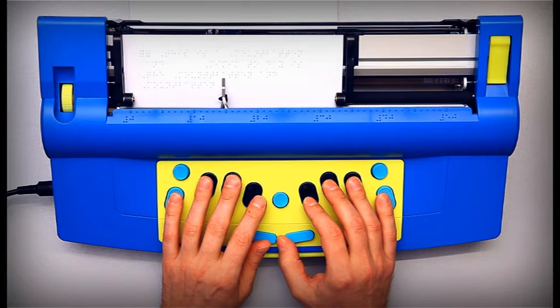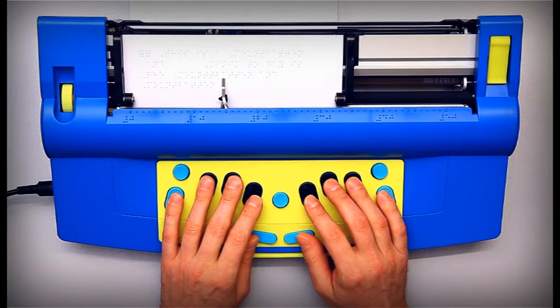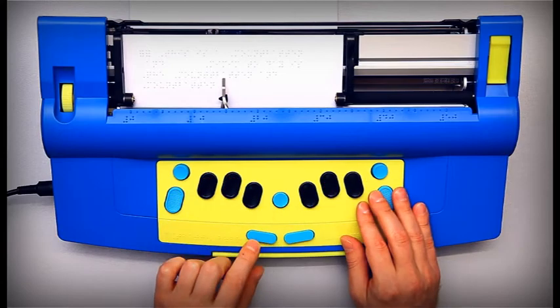When you need to create a new line, press the New Line button. The Mountbatten confirms your action by saying New Line.